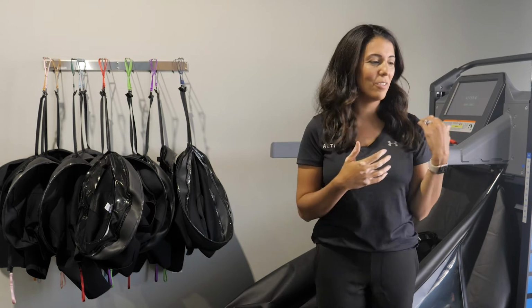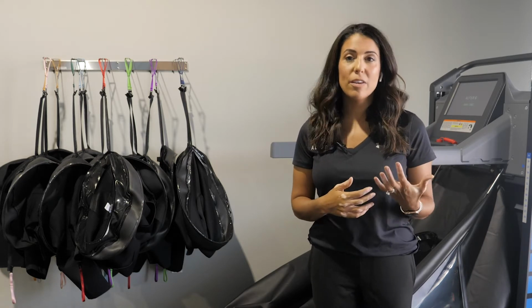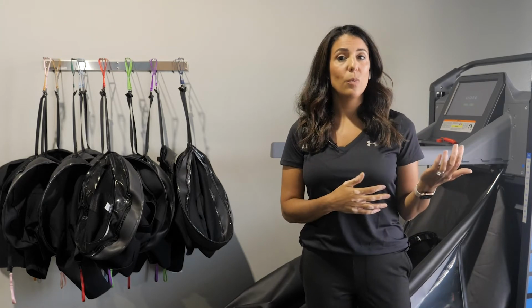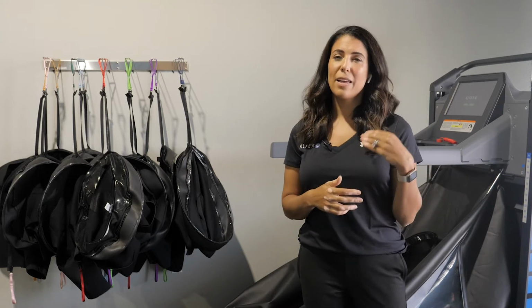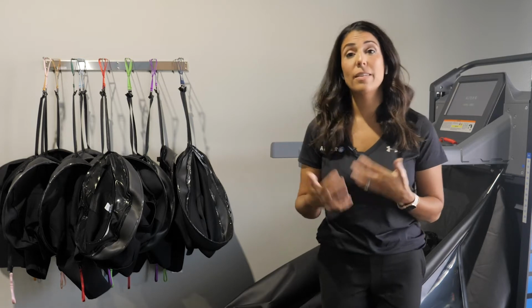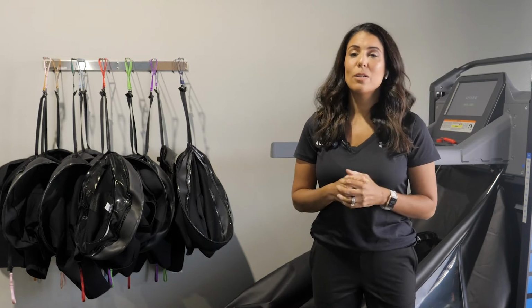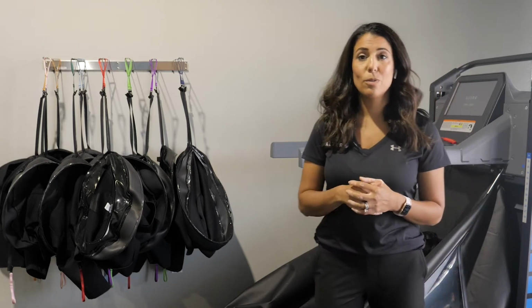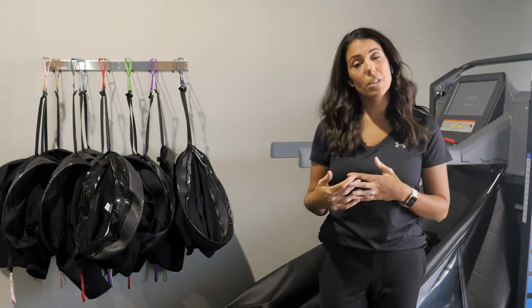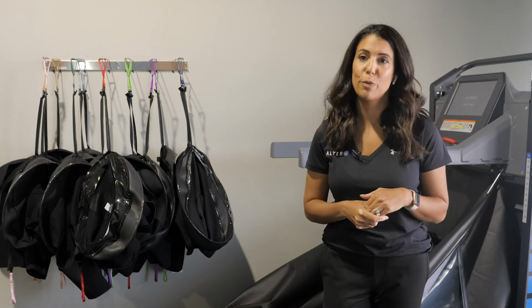The other avenue that the treadmill definitely fits into is simply sports performance. So you can do higher level activities, whether it be exercises, simple running, working on running mechanics, but at a higher level than you could over ground while protecting your joints. And this allows us to work on performance training with athletes. So it's no longer simply a device that's used for those that are injured, but also it could easily be used for injury prevention, and again, just training at a higher level for better performance.